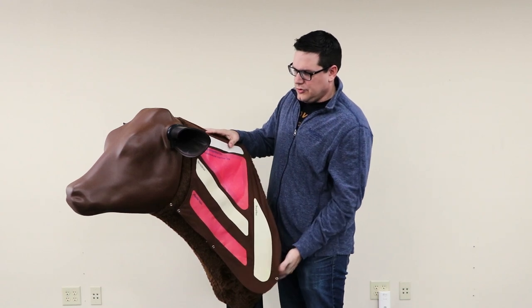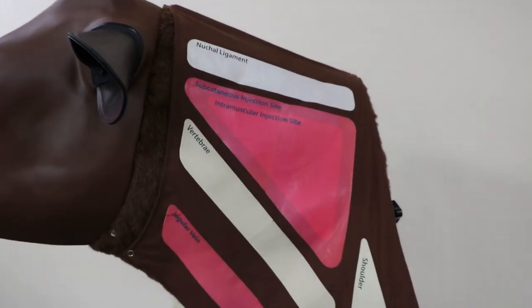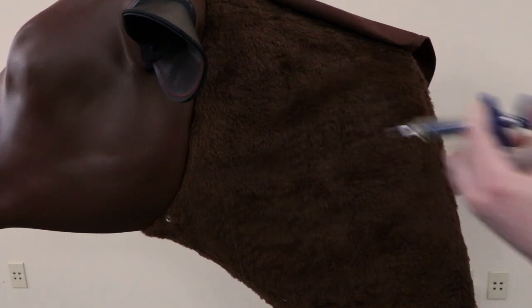It allows you to see the injection site cover here, where students can then see where they need to be injecting for subcutaneous and also intramuscular injections. It also has a place where you can see the jugular vein.